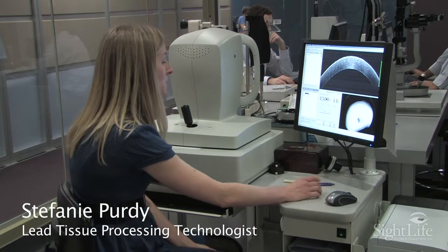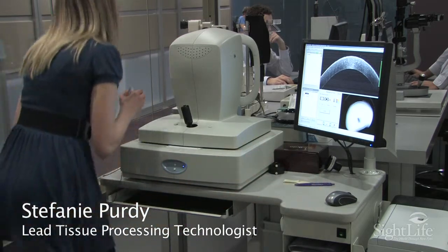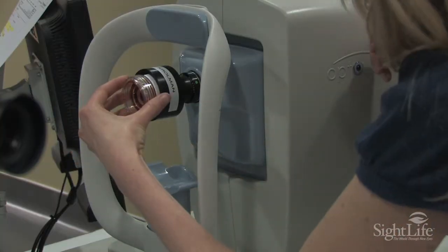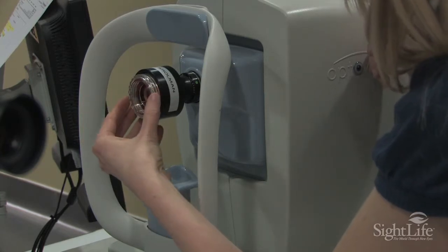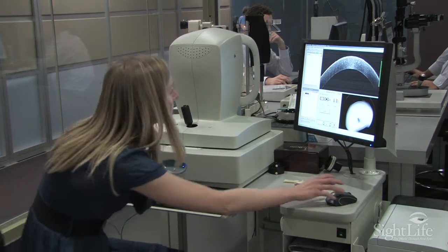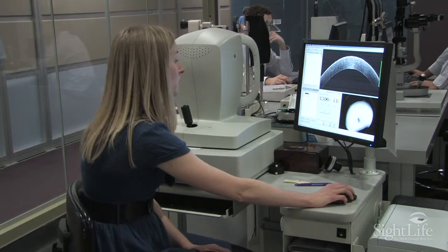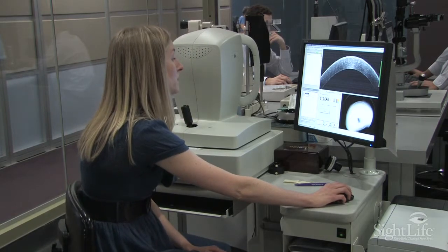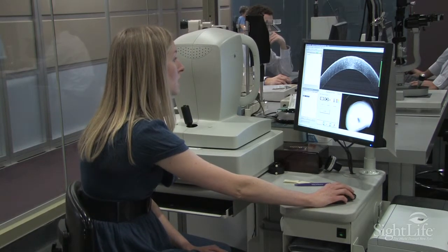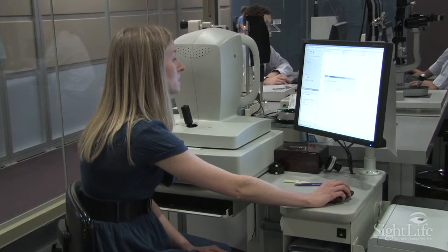What we do is we put a cornea on the other side here and we adjust it. Then we come over here and we take an image, just like this one here, and we take several different images, and then we can go in and analyze those.